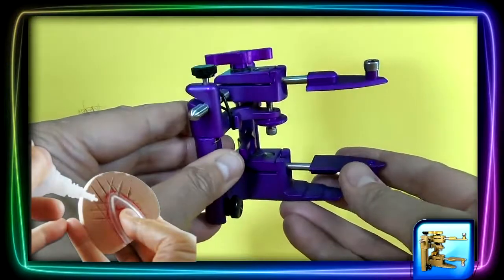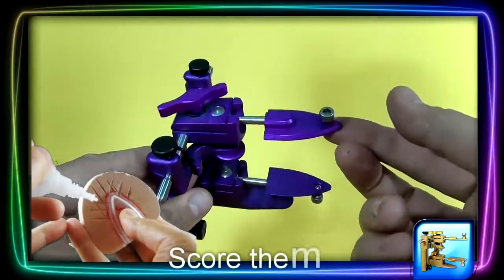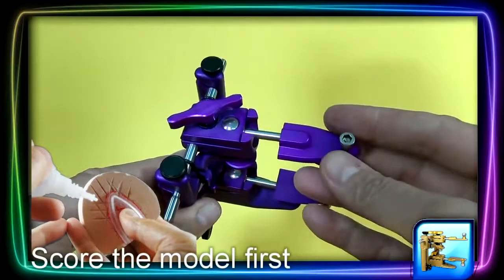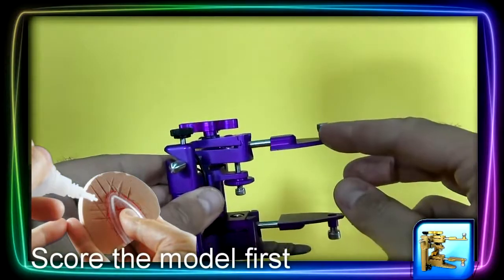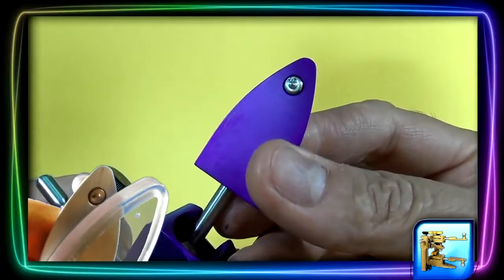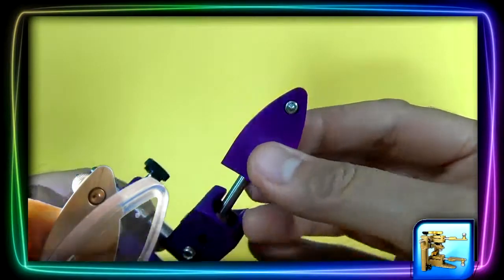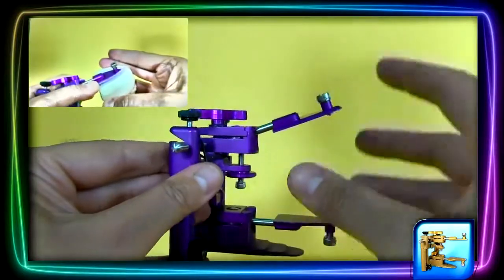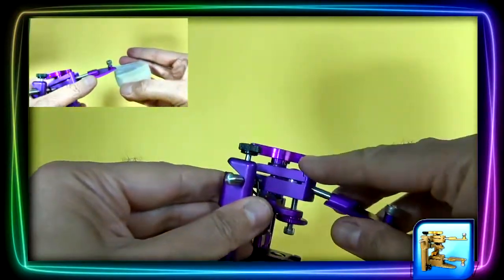The plastic disposable gets glued onto a model and the model is slipped onto the male here and secured by the screw. This screw has a little prong at the end which will make a dimple into the plastic. This would allow the model to slide off and go back on securely in the same position.